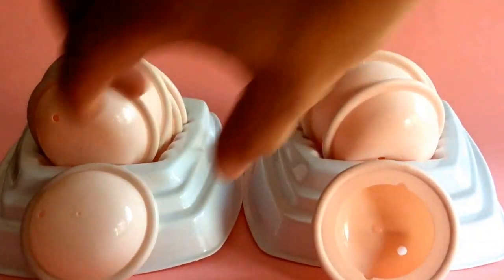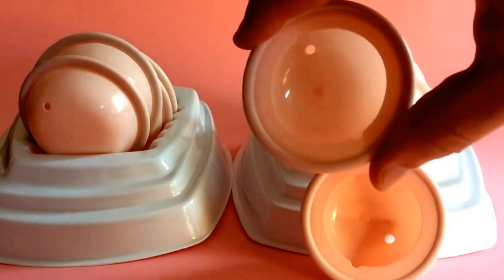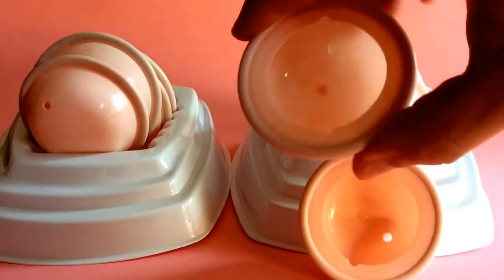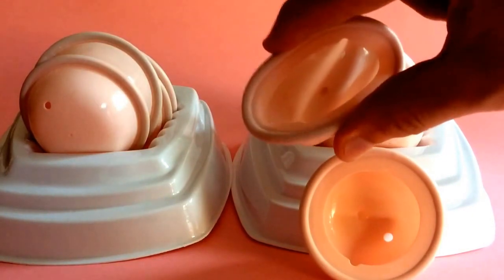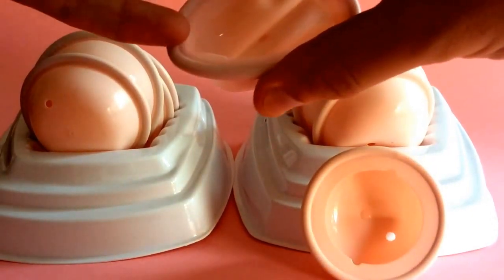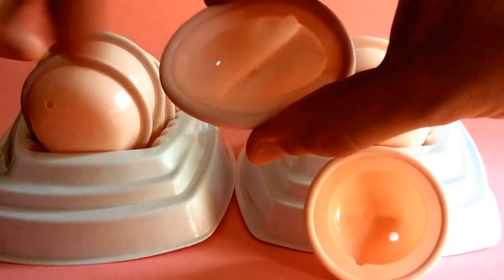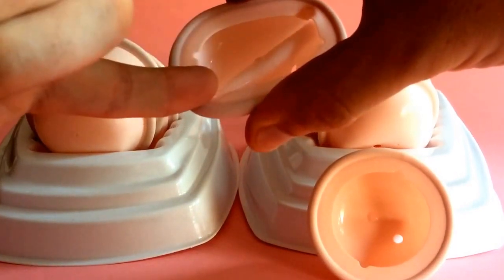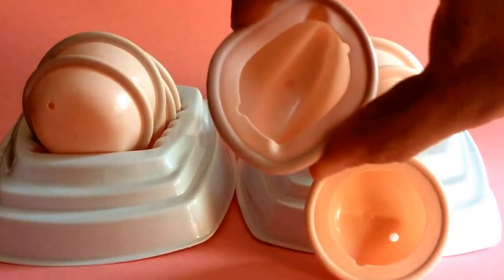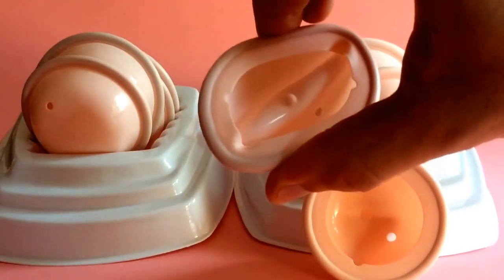The Arcing diaphragm here on the left is called an arcing diaphragm because it's got various arcs in it supported by hinges. When we push down here you can see a hinge section there across that axis, and also if we push it here you can see another hinge supporting those arcs — so really we're talking about two hinges with the arcs in the middle.